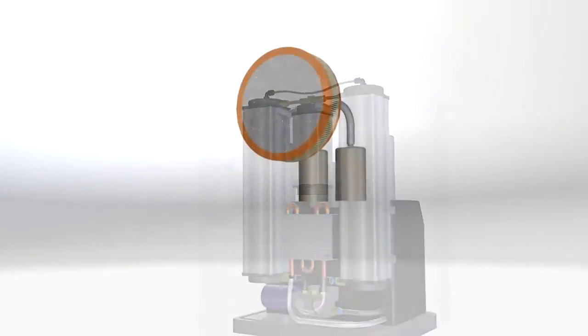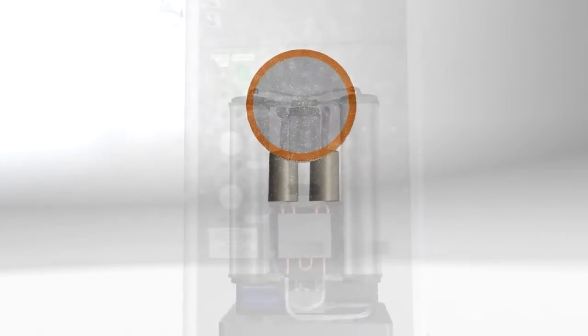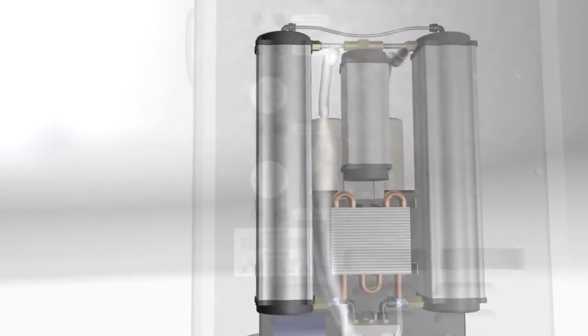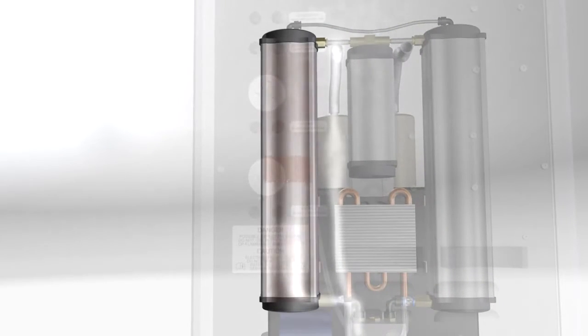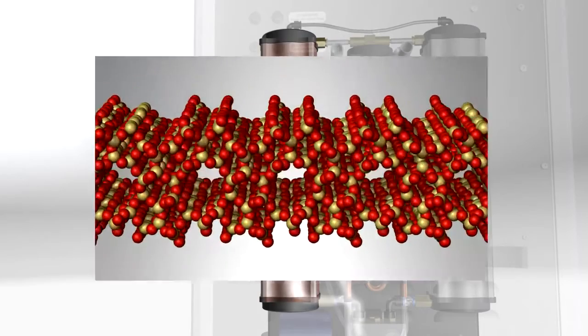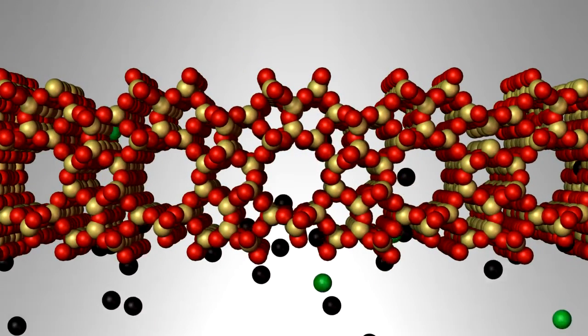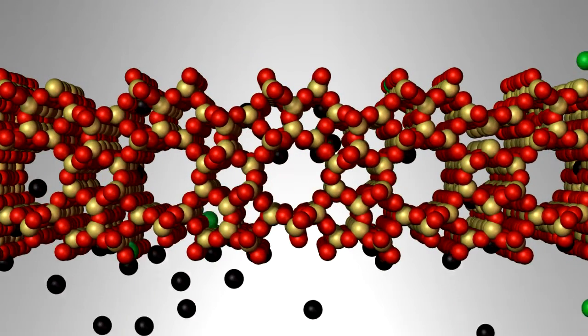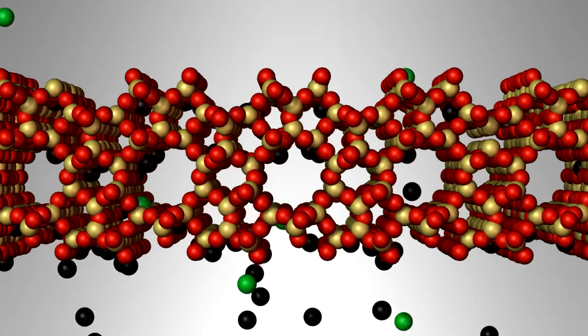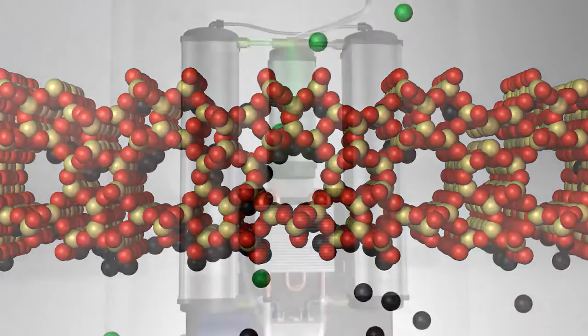Air is drawn into the UAM and is purified by two different filters. The compressed air passes into a canister filled with a powdered material called zeolite. Nitrogen sticks to the zeolite, while oxygen and other gases flow through it to a reservoir tank.